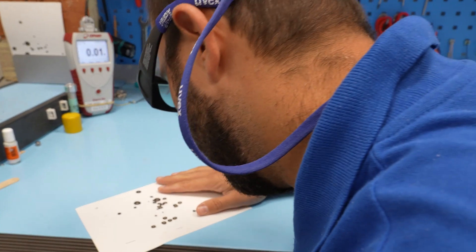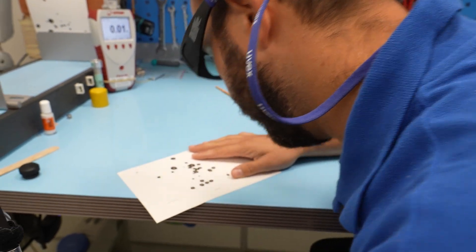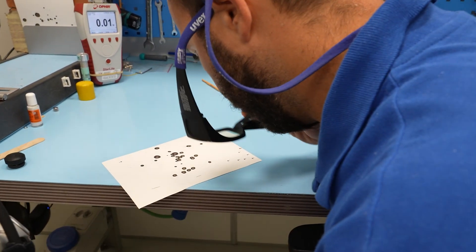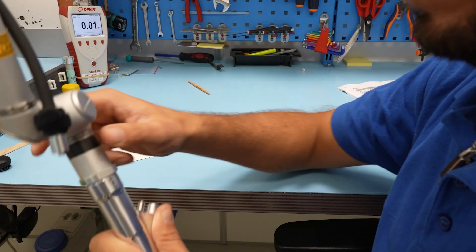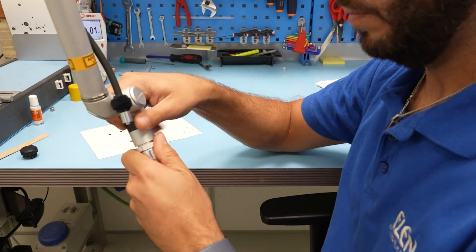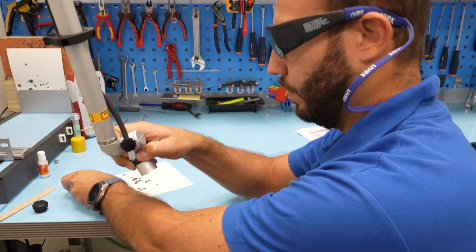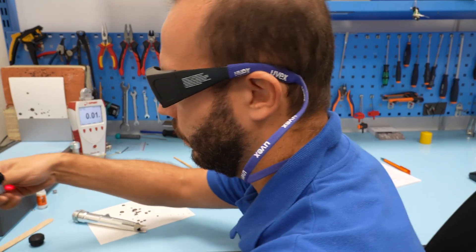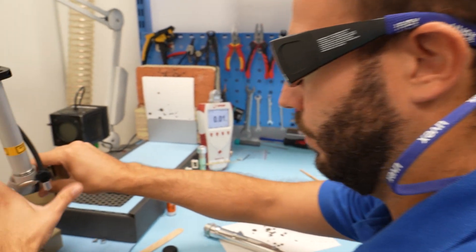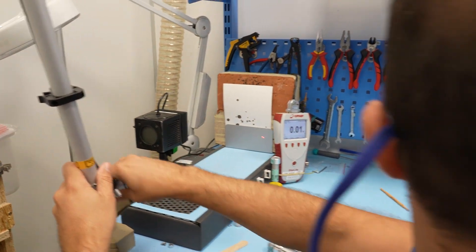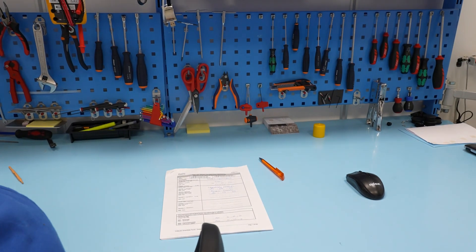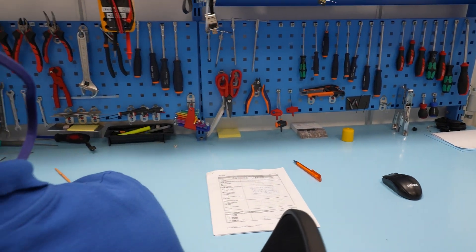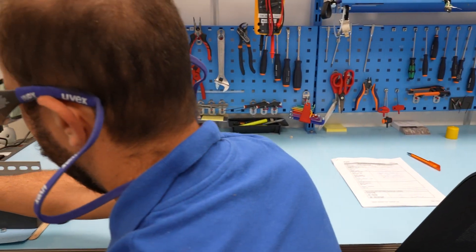We need to test it for many hours with particular methods collected into a procedure that we use to verify and test the heat.